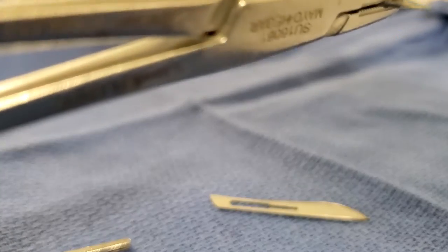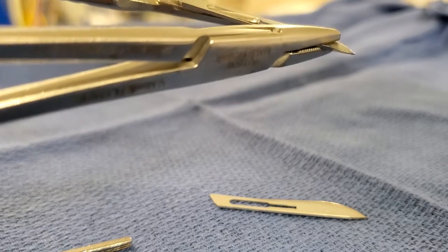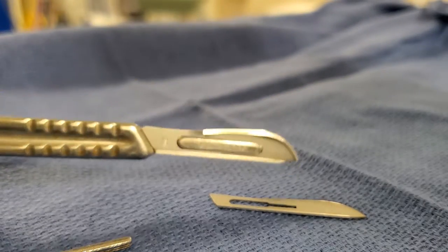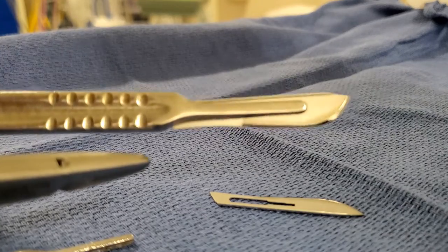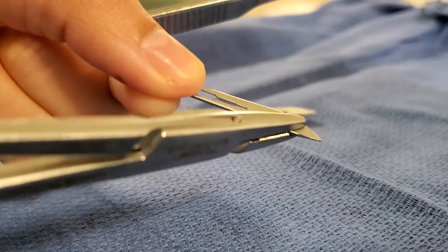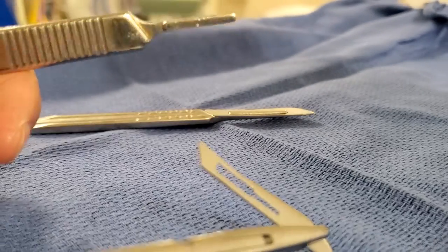I kind of jammed that in there — hold on, let me do it again. There you go. It can be a little tricky because the grooves on this knife handle are not really straight. Don't worry, my setup is not sterile anymore because the case was cancelled.